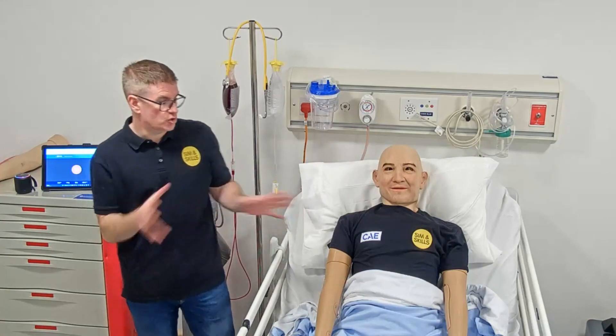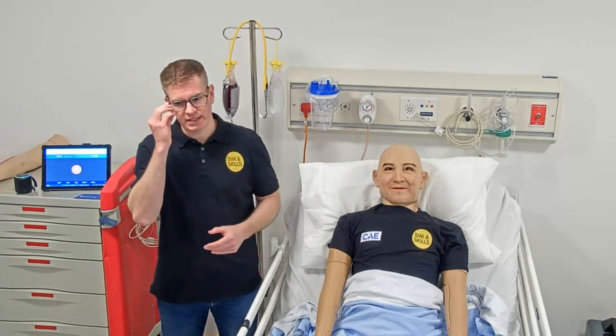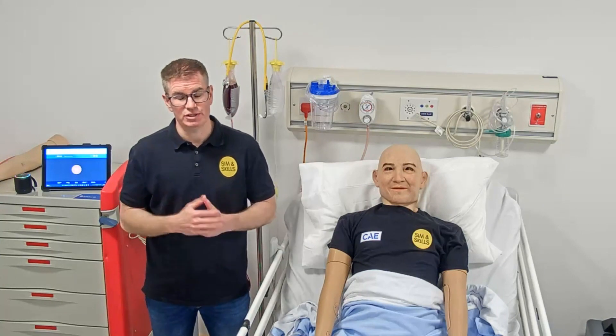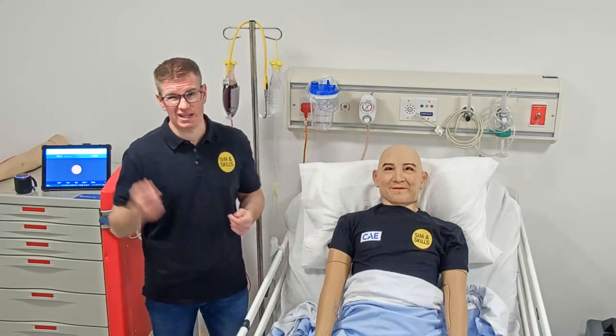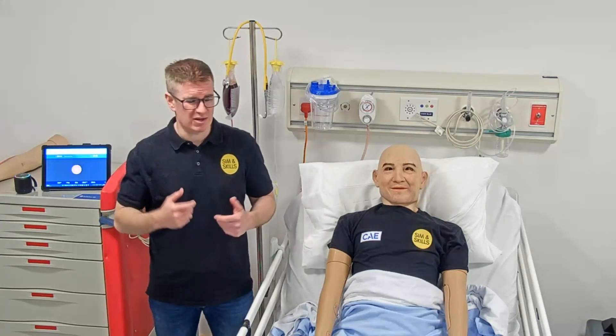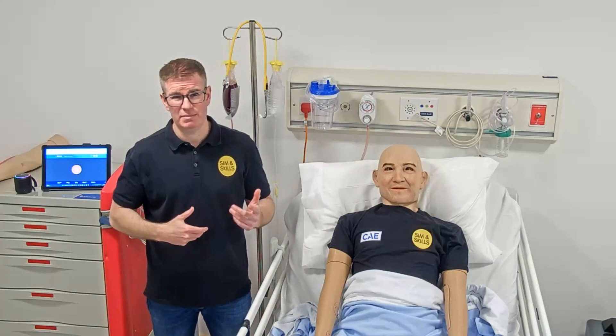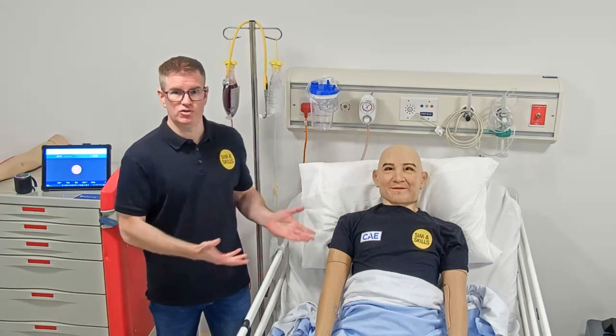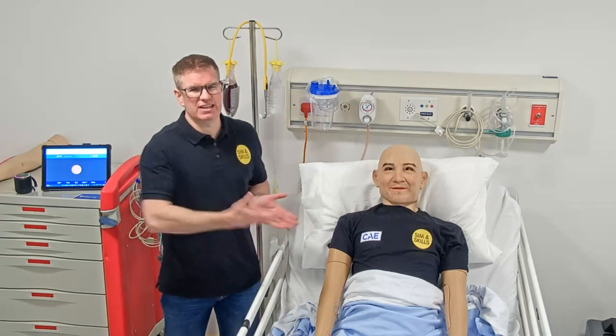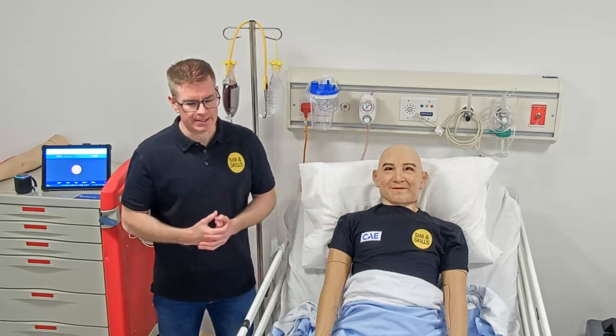Now that's fantastic if you've got a one-way screen and you're not stood beside the mannequin. Even then it's quite artificial, but if you are close to the mannequin and you're wearing a headset, or as a member of faculty or educator you're in the same room, you kind of lose that fidelity and often have to prompt the students with how the patient's feeling and giving them feedback.